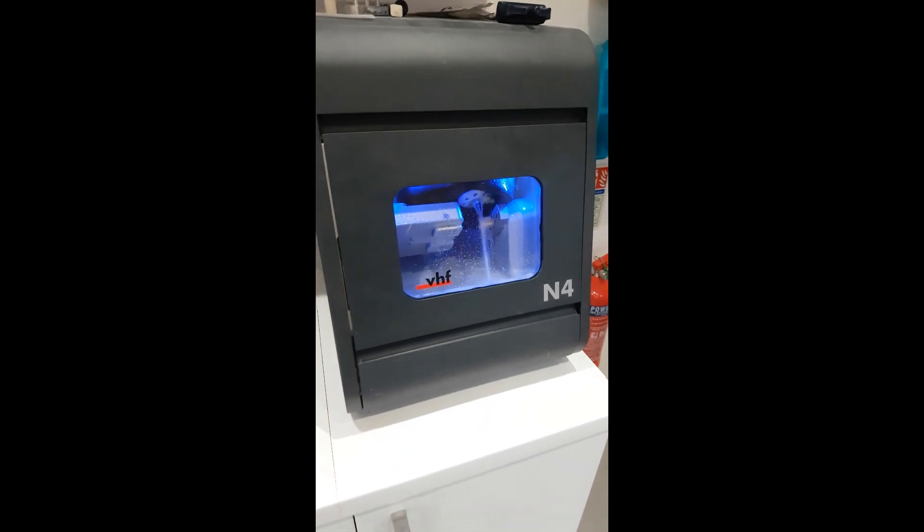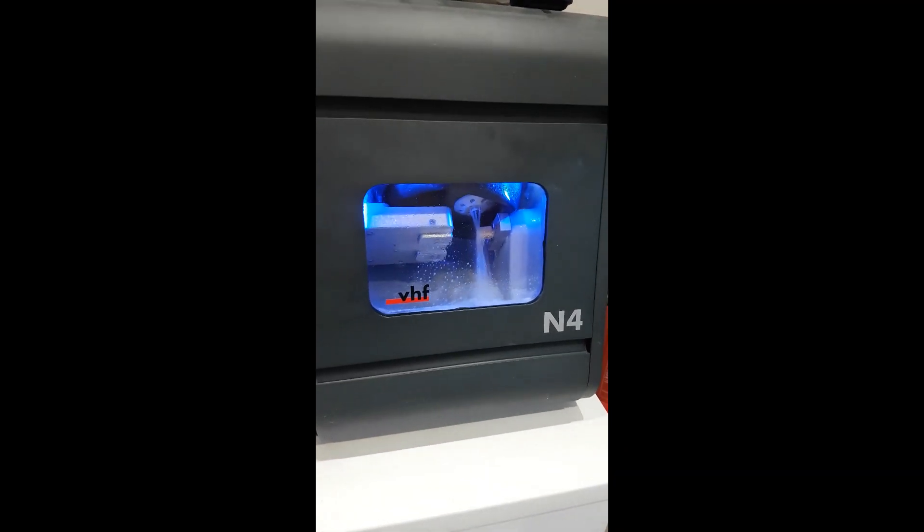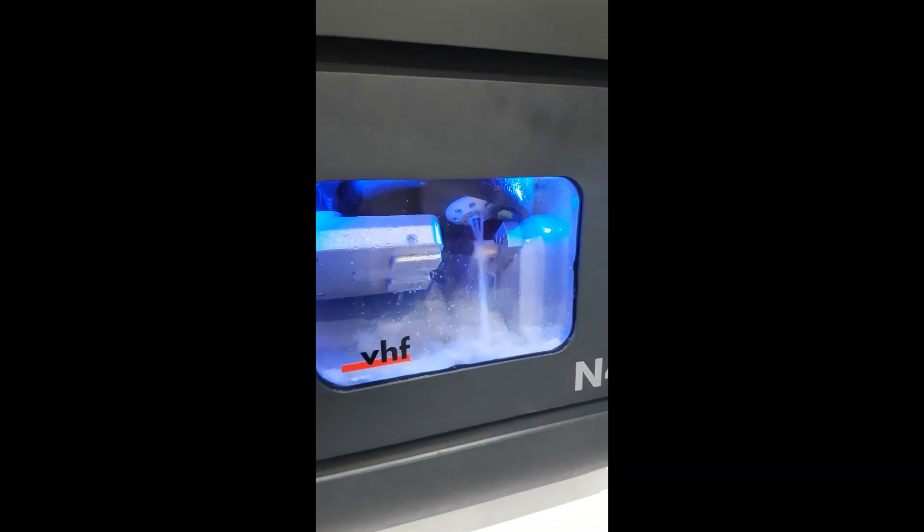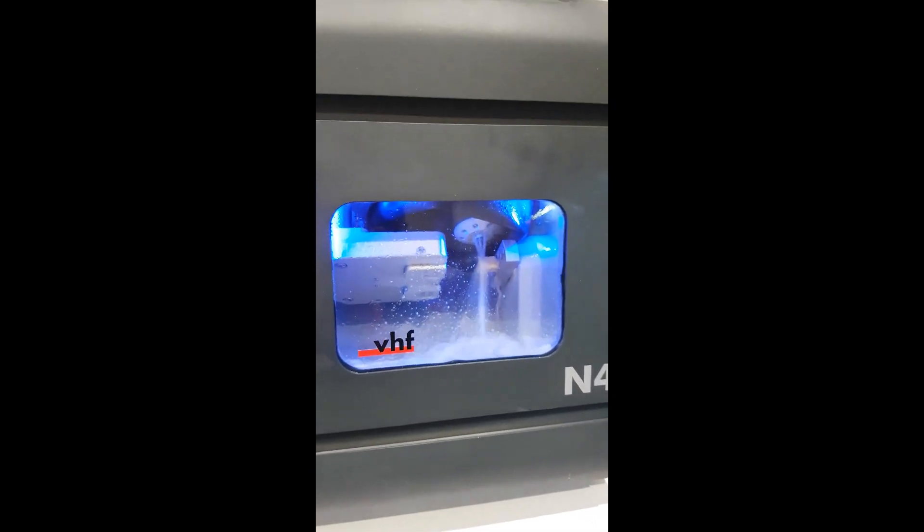It's not designed to be in the practices, in the environment where there are patients. We have another machine for that—that's the VHF Z4. I'll come back to this later and show you the finished result.